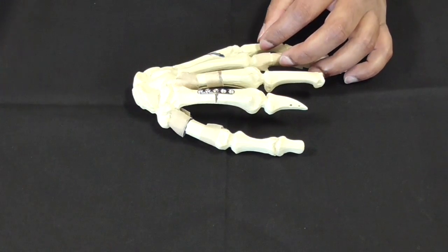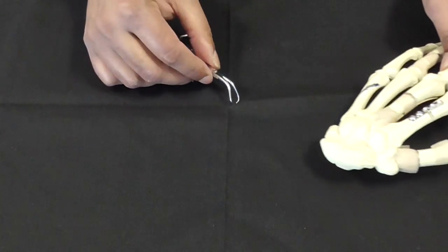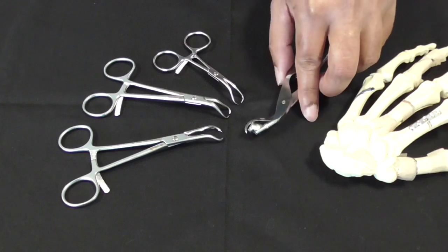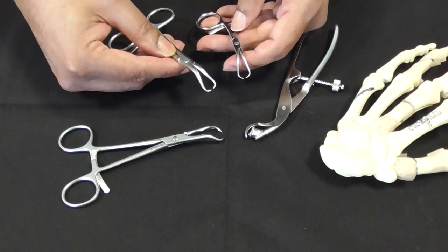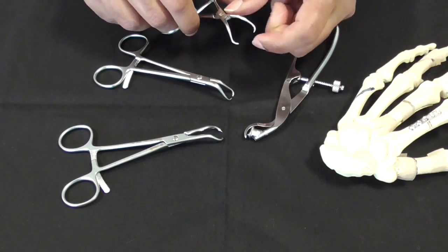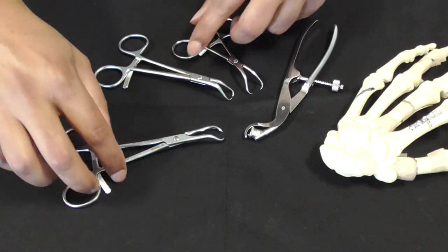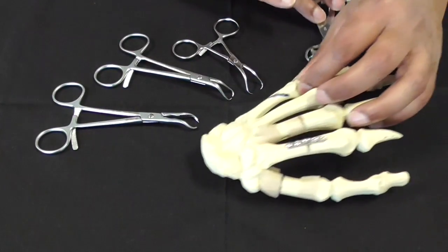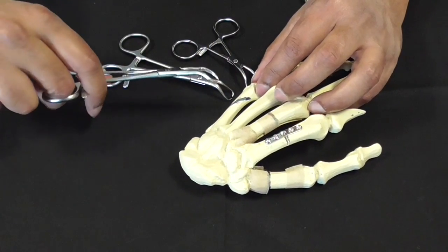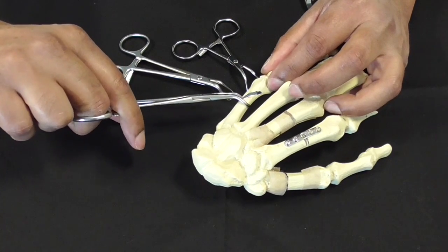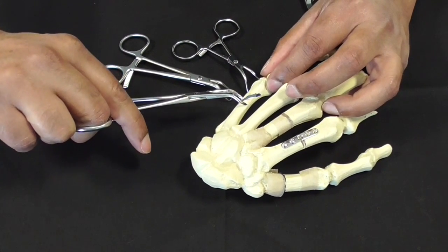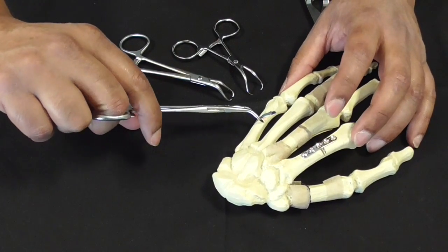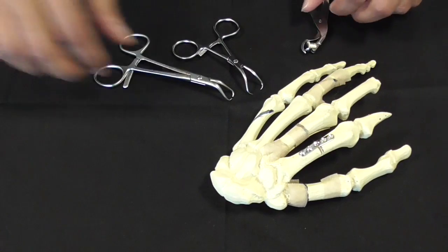You've got your bone now in the position you want, you've stripped your periosteum, and you want to stabilize it. So you're going to use fracture fixation forceps. There are four types here, all slightly different. These are smaller and larger versions of the same thing. They're quite fine tipped and pointy, and this one's about the same size as the larger one but the tip's a little bit bigger and blunter. These work very well when you've got an oblique fracture or spiral fracture. You hold onto your fracture like that and you stabilize it, and you've got a ratchet mechanism here to ensure it holds.